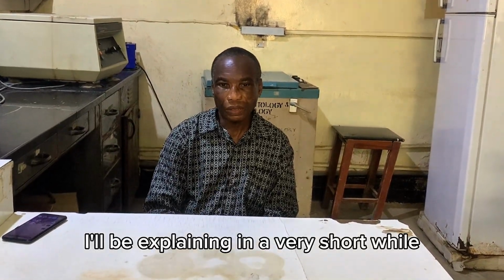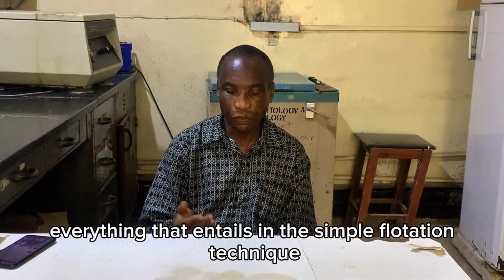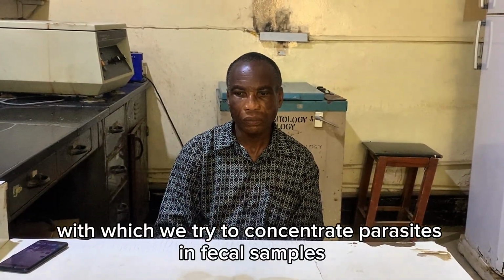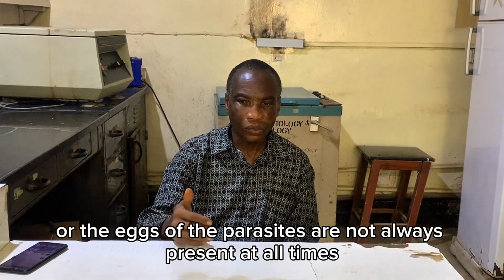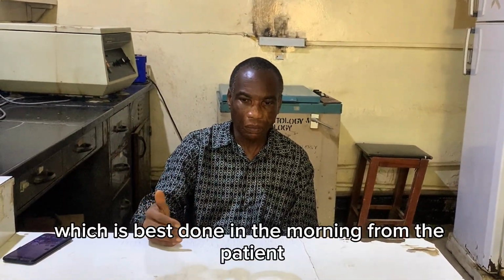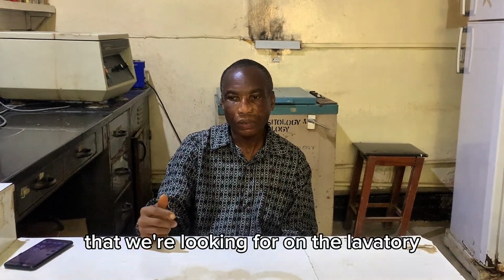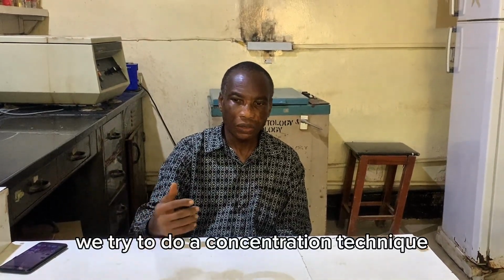Good day. I'll be explaining in a very short while the principle and everything that entails in the simple flotation technique. Now, the simple flotation technique is a method with which we try to concentrate parasites in fecal samples. We should understand that parasites, or the eggs of the parasites, are not always present at all times. The time we collect the feces, which is best done in the morning from the patient, might not necessarily contain all the eggs that we're looking for, or the larvae, or the cysts, or the oocysts. So what do we do? We try to do a concentration technique.